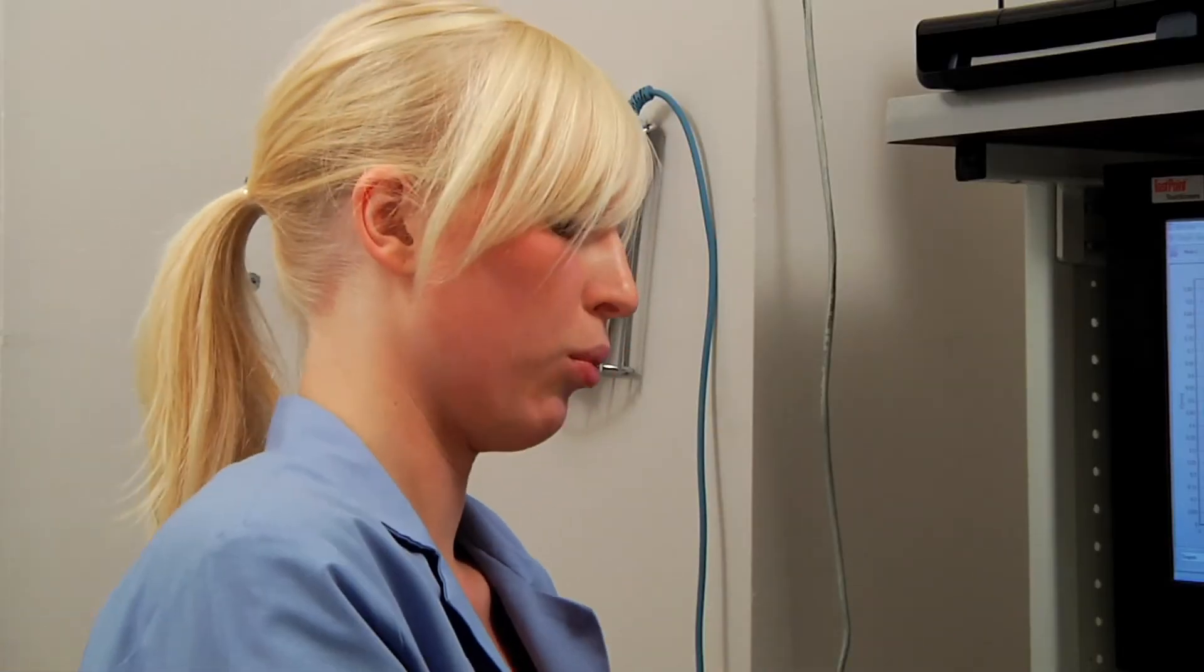So if you're not calibrating within range on either one of those steps, first you should try to clean the probe two or three more times and calibrate after each cleaning. If you're still not calibrating after each cleaning, then you can just call PhysioAgent. We'll help you troubleshoot your issue.